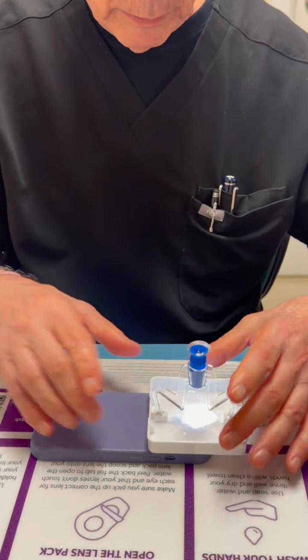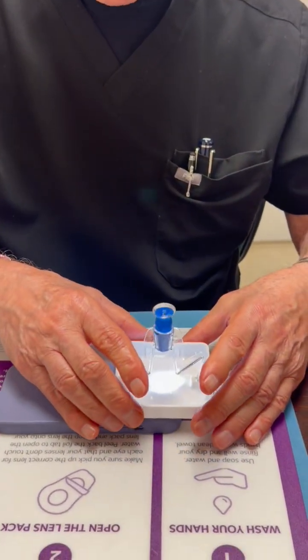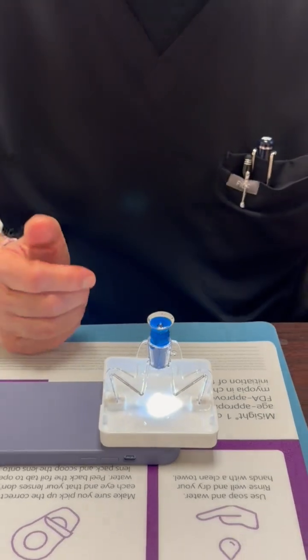The inserter technology fits right over the light on your phone. I'm going to put my own scleral lens on.